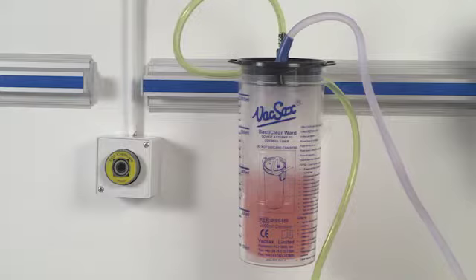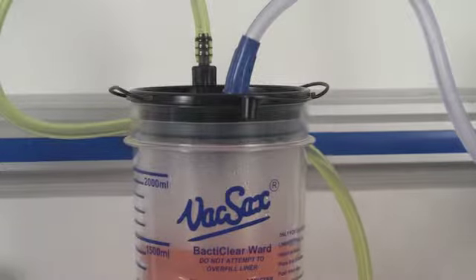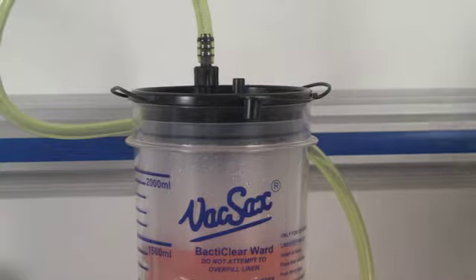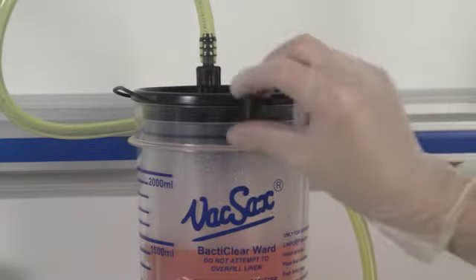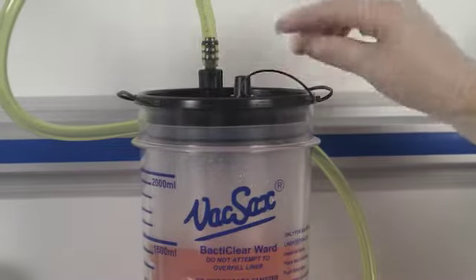Once the liner is full and with the vacuum still turned on, remove the patient tubing, twist off the black cap located on the front edge of the liner top, and insert firmly into the patient port.